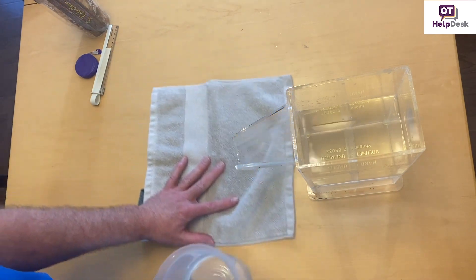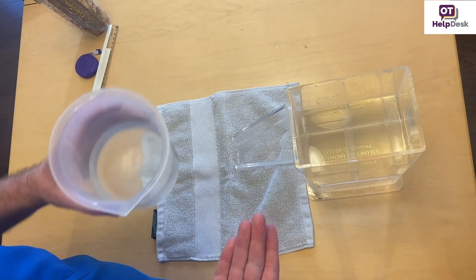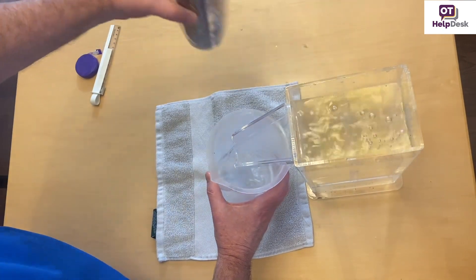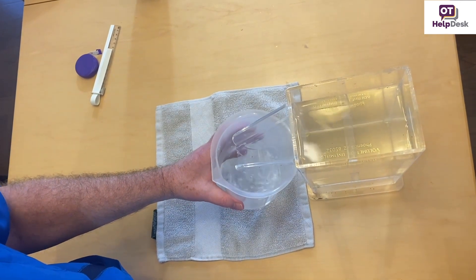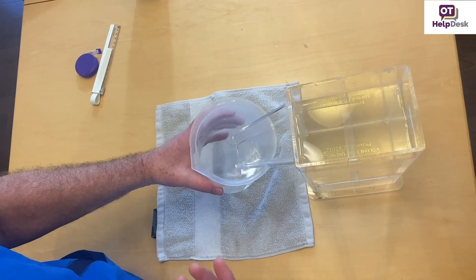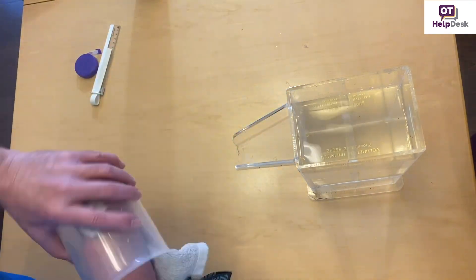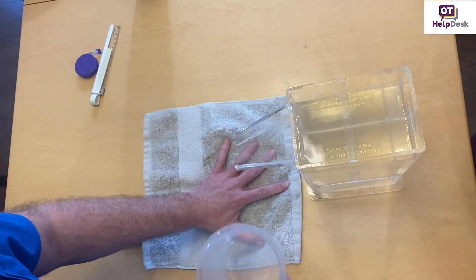Now watch — because at this point the device is not calibrated. We need to add some more water and let it run out, because you'd be surprised how much water you lose on the person's hand and how much drips out into the cup that doesn't come out. So that's why we call it calibrating it — make sure it's flat on the surface, that it's not rocking, make sure you're not moving it. I'm going to pour this out and even dry out the center, then stick it down again. We always stick a towel underneath because it can get messy.